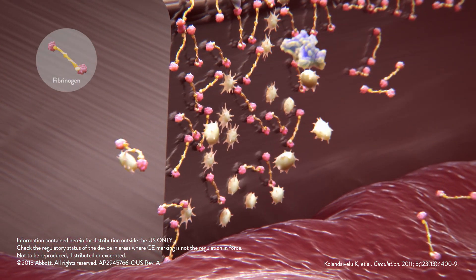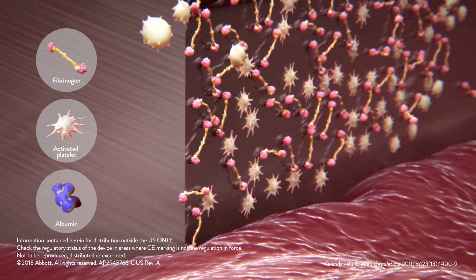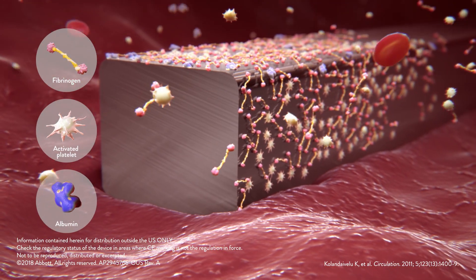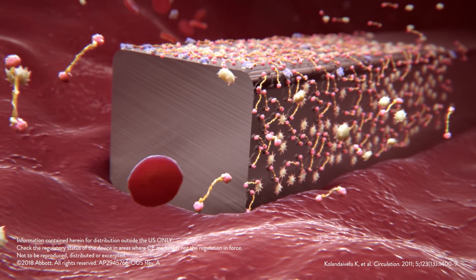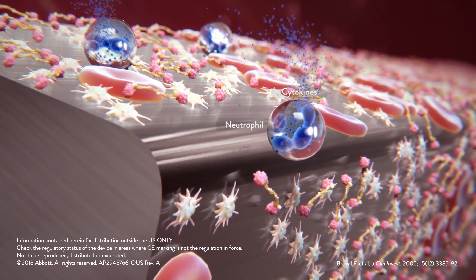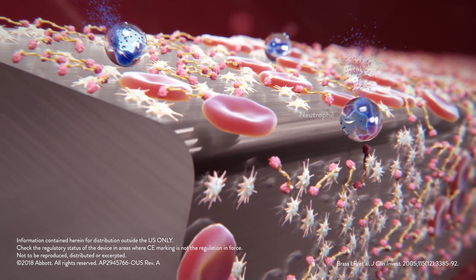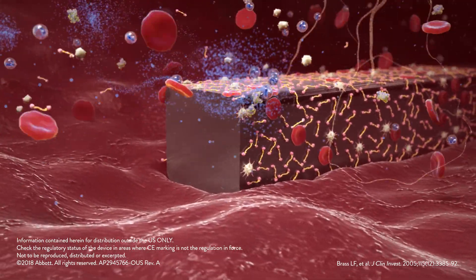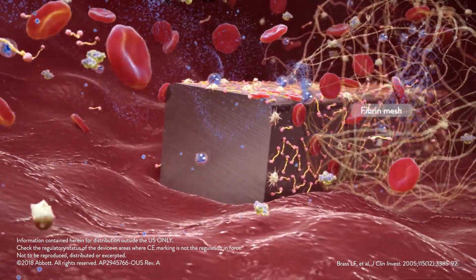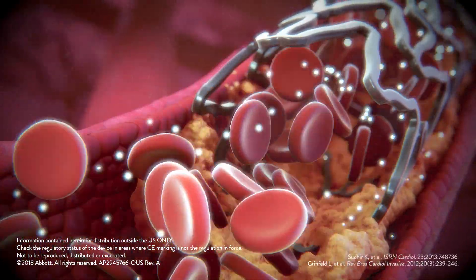subsequently higher fibrinogen adsorption, resulting in platelet adhesion, activation, and aggregation. This inflammatory response delays healing. A fibrin mesh is formed which entraps platelets and red blood cells, leading to thrombus formation and may promote restenosis or thrombosis.